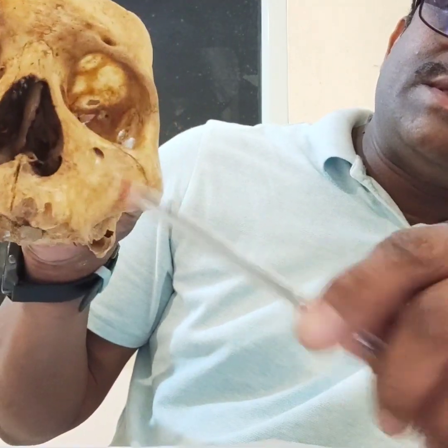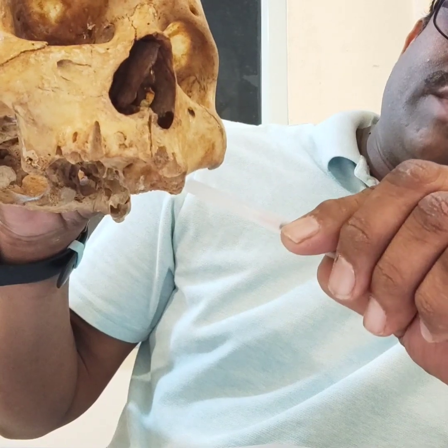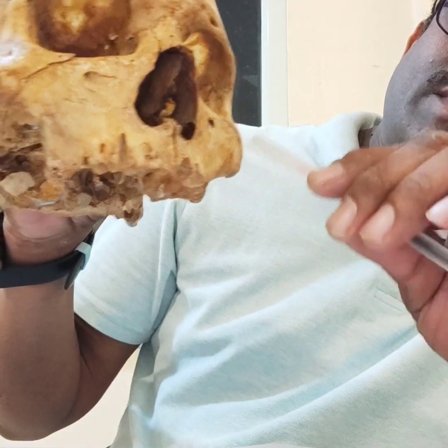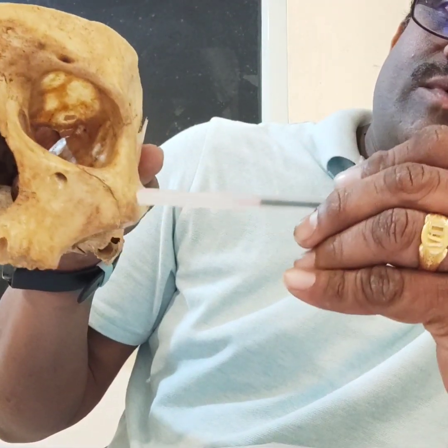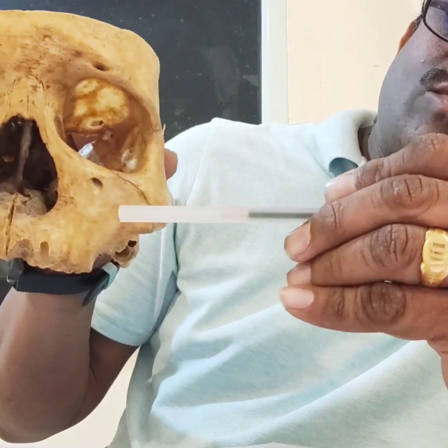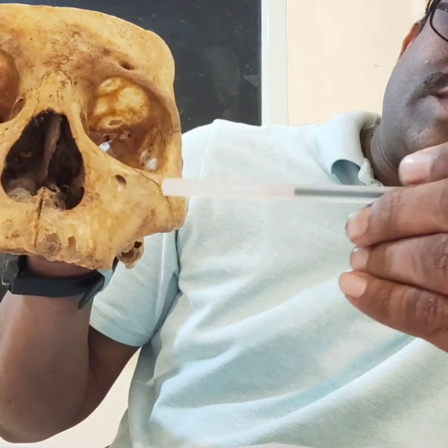The infra-orbital foramen is important for zygomatic implant placement. Usually zygomatic implants are placed at an angle from the first or second premolar area, angulated towards the buttress — this is the buttress of the zygomatic bone. Sometimes quad zygoma is used, meaning two zygomatic implants on each side.